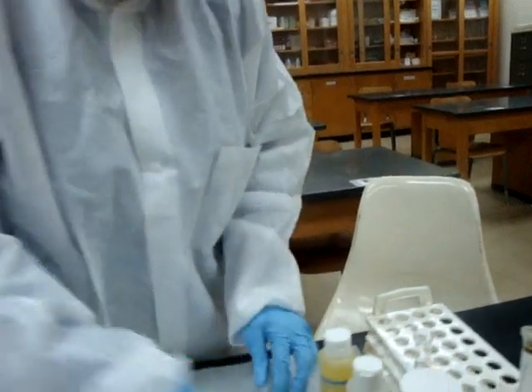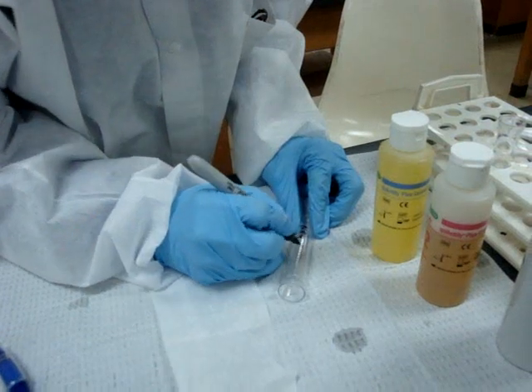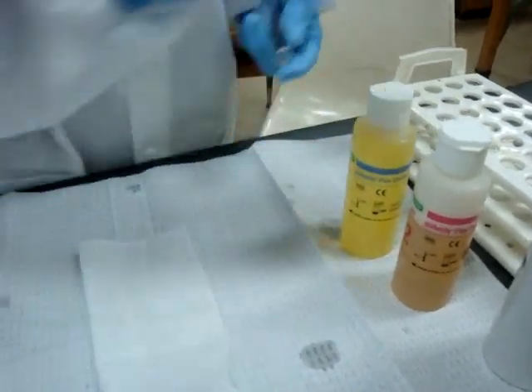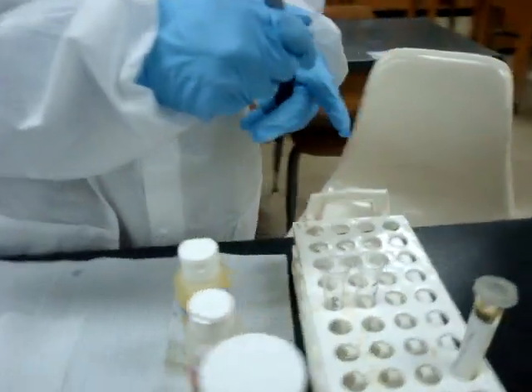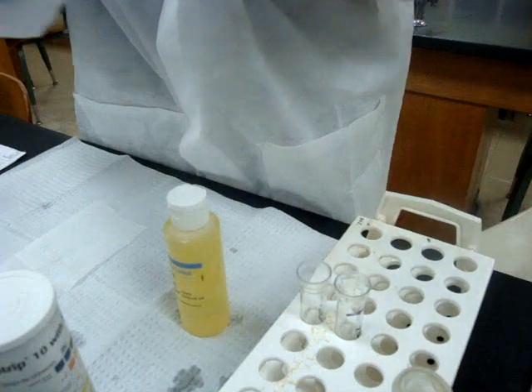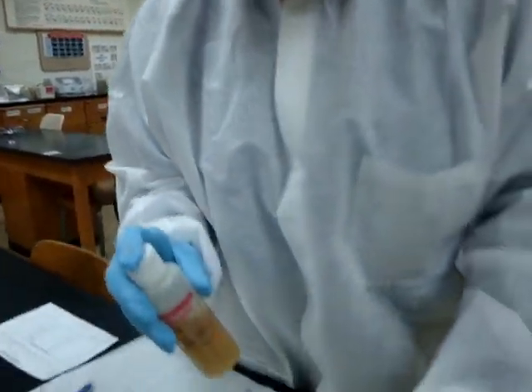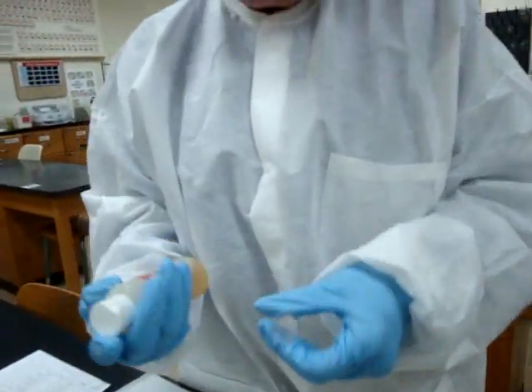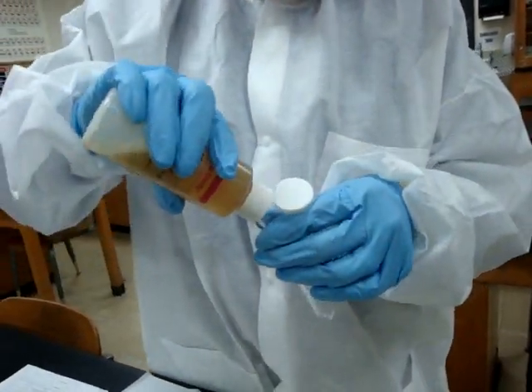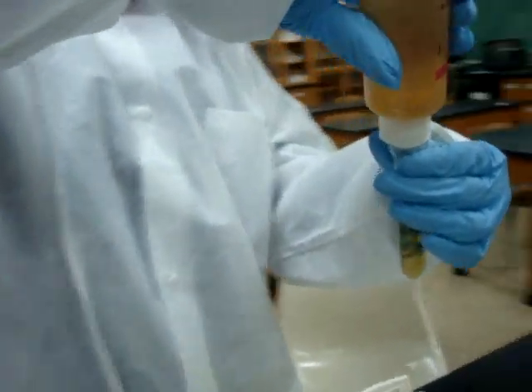We're going to label the tubes: this one with negative quality control, and this one has already been labeled with positive quality control. I will add the quality control material to these containers. I will mix them and you always want to let them come to room temperature. This is number two — this is positive. I want to put about 10 ml of fluid in here.